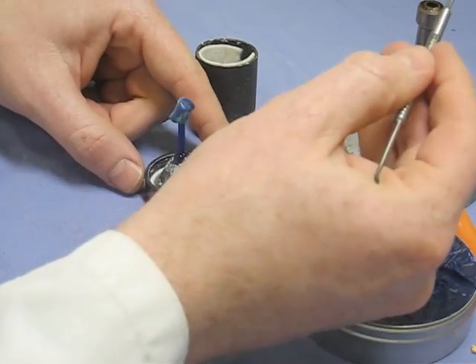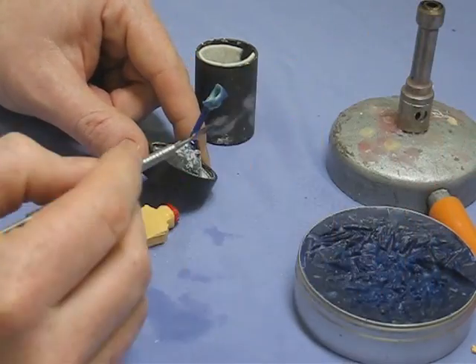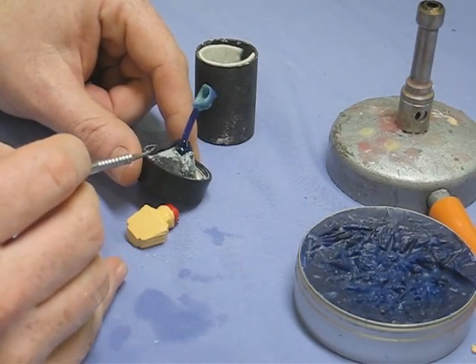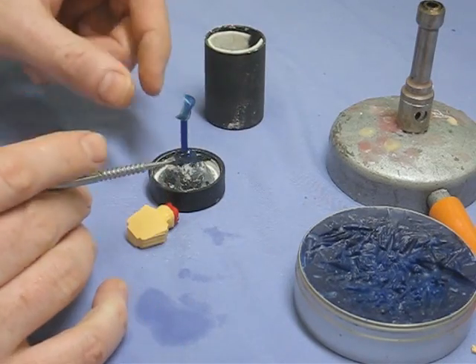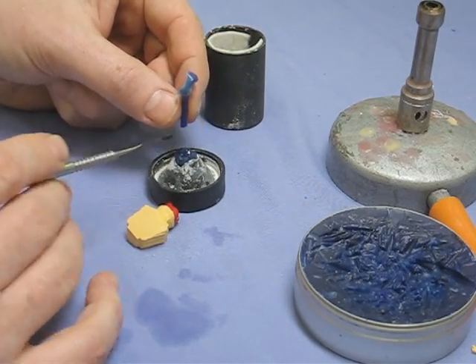This has been worked out over many, many years and is accurate to many parts per million these days. Gold and Cristobalite tend to be the best match so that's why they're more favourable.